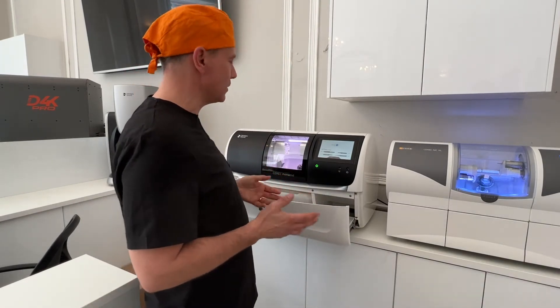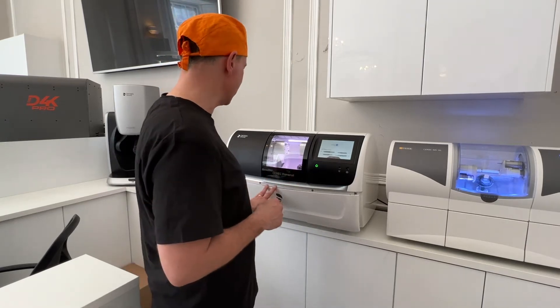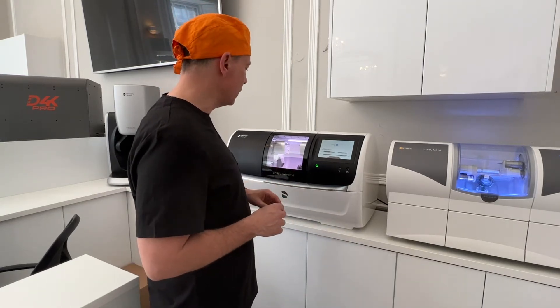I do love both these two machines but they are slightly different. They do things slightly differently. There are a few do's and don'ts really.